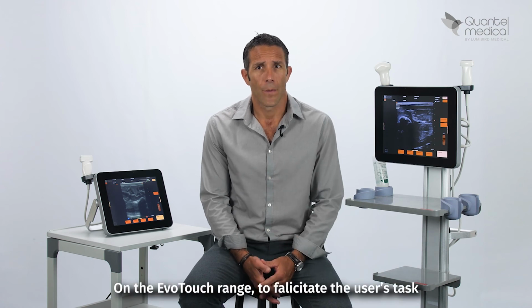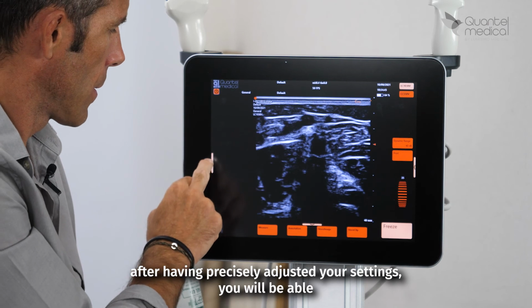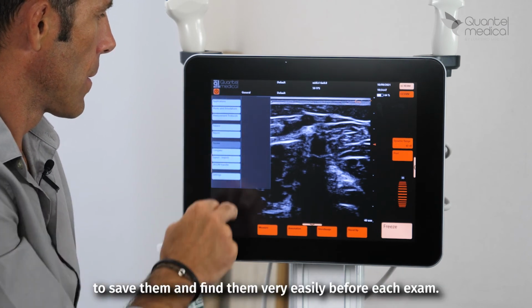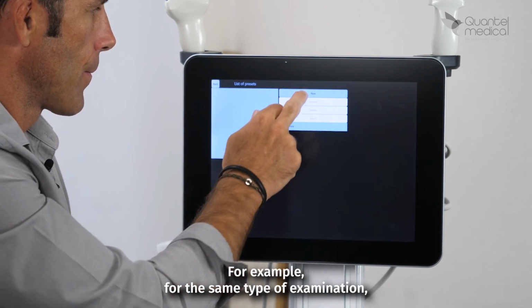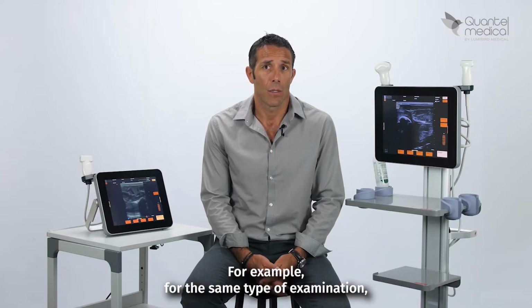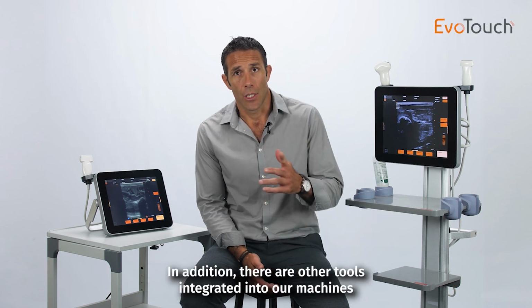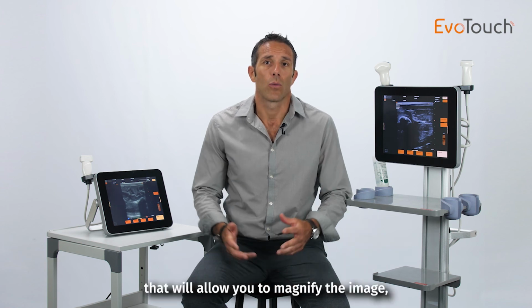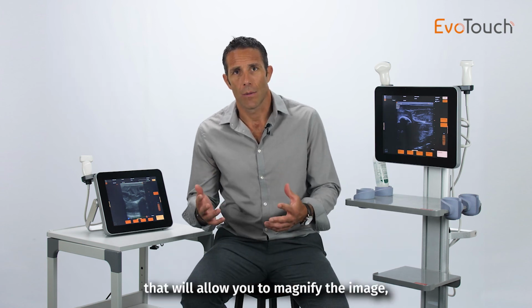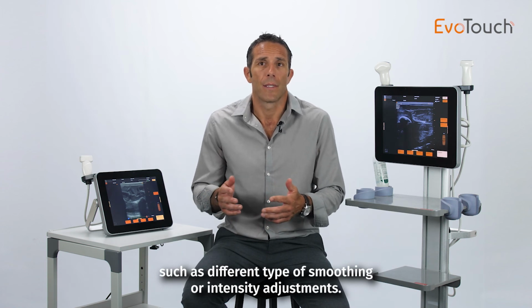On the EvoTouch range, to facilitate the user's task, after having precisely adjusted your settings, you will be able to save them and find them very easily before each exam. For example, for the same type of examination, you will only have to choose the settings that you have created for yourself. In addition, there are other tools integrated into our machines that will allow you to magnify the image, such as different types of smoothing or intensity adjustment.